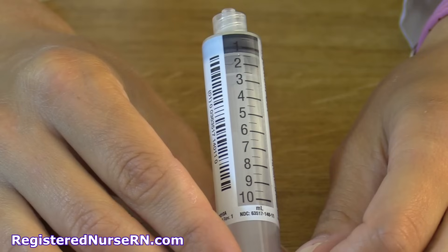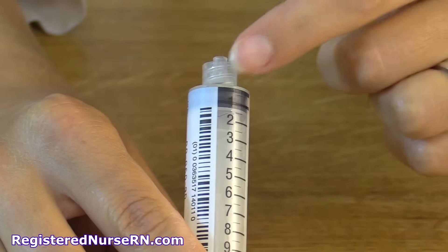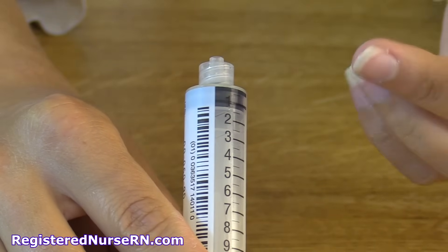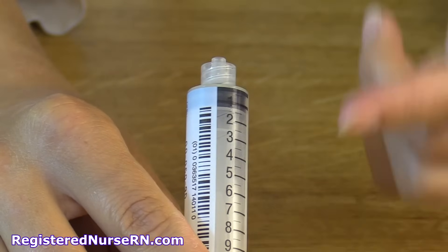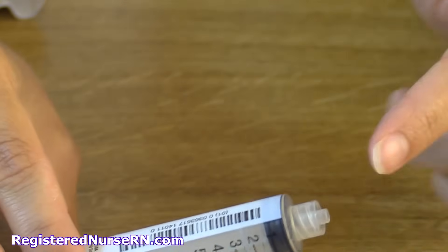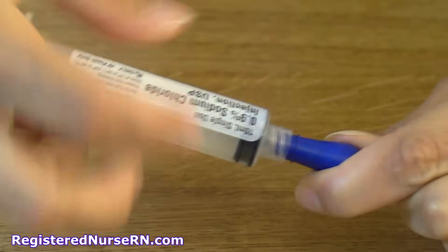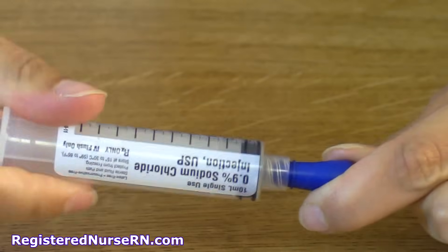Now let's go over the basic parts of the syringe. At the top, this is the adapter part. This is where you would screw on the needle if you were going to give an IM injection. In the hospital, we use needle-less devices, so we would just screw this adapter part onto the hub of the IV or the line, and give our medication that way.